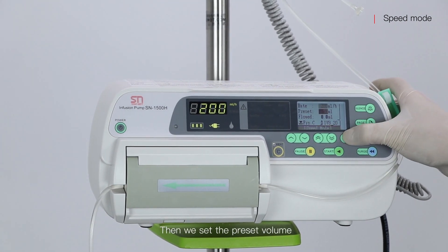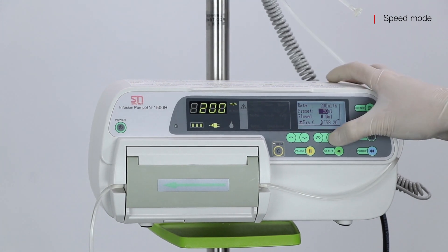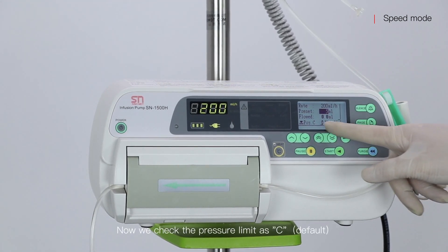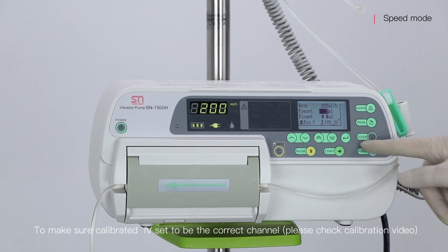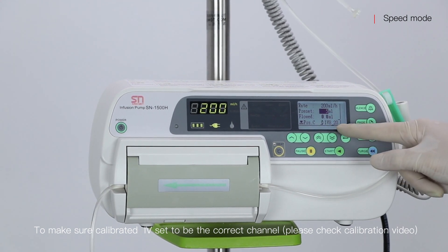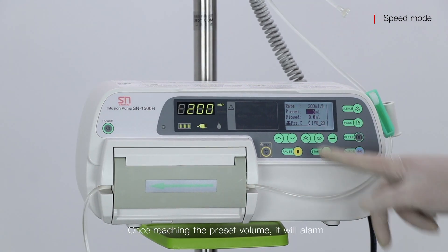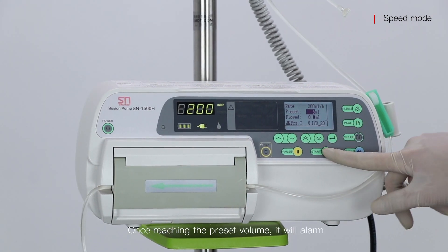Then we set the preset volume. Now we check the pressure limit, and confirm the calibrated IV set is in the correct channel. When reaching the preset volume, it will alarm.